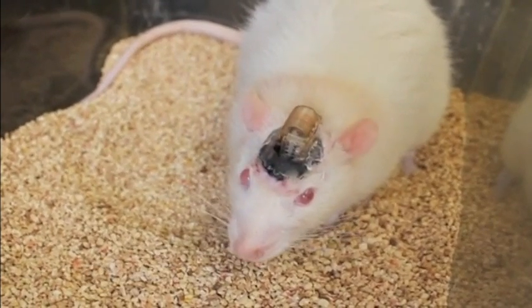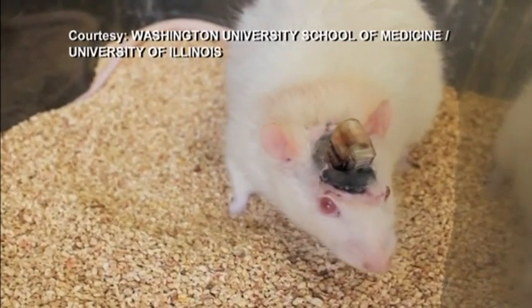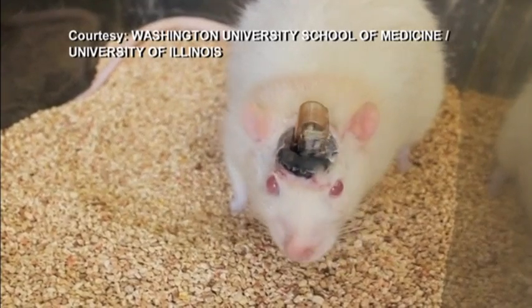The device attached to this mouse's head can wirelessly inject drugs deep into its brain at the click of a button.